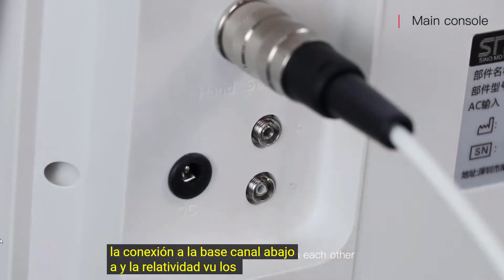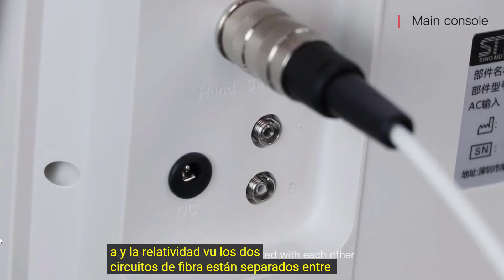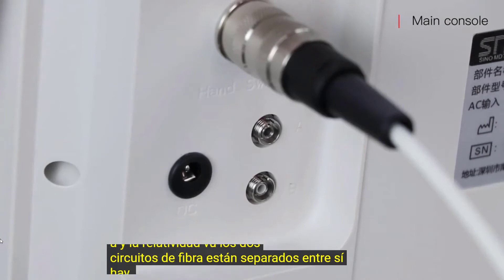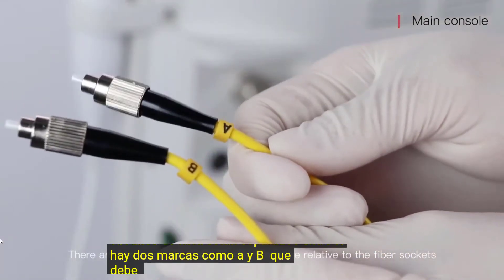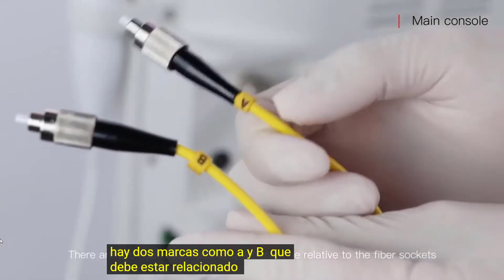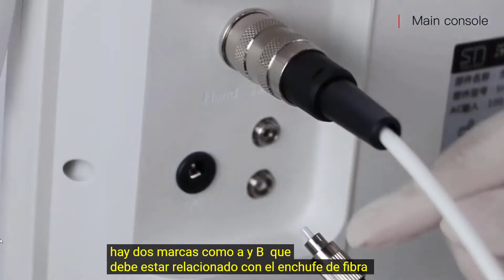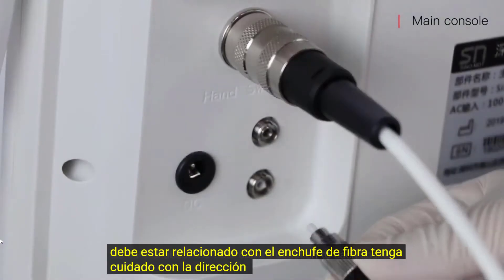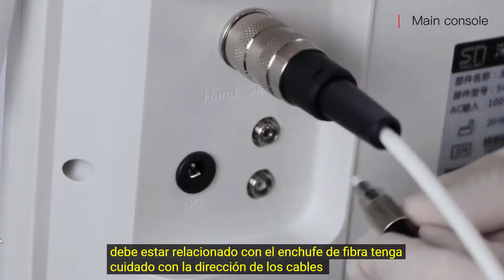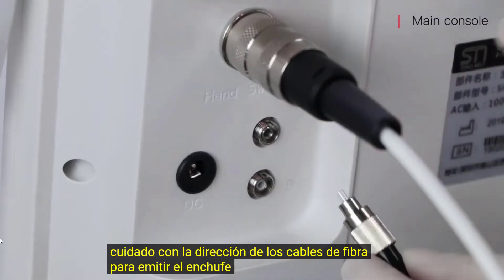The two fiber sockets are separated from each other. There are two marks, A and B, which must correspond to the correct fiber socket. Be careful about the fiber cable's direction to each socket.